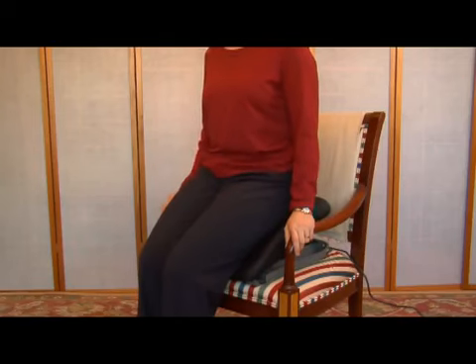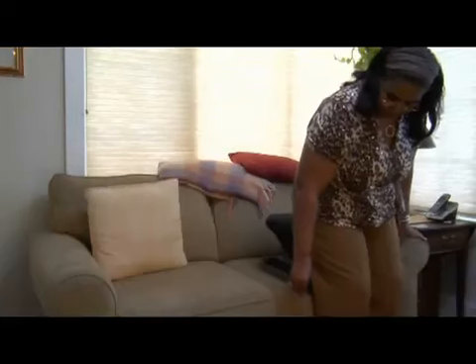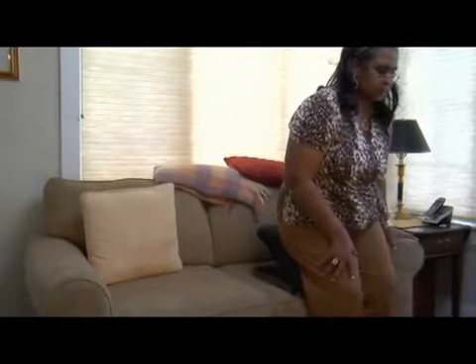If you are on a sofa, push the PowerLever down and place one hand firmly on the armrest and your other hand on your leg like this, to help stabilize your body. Since the PowerSeat will move up and down, always use a stable armchair or sofa with an armrest that you can hold onto for firm support.